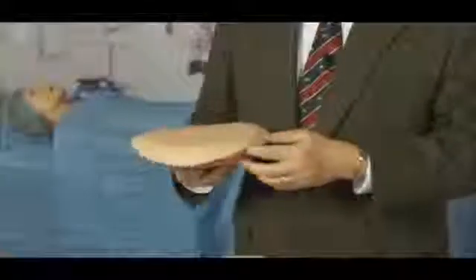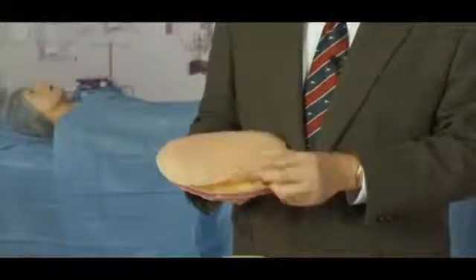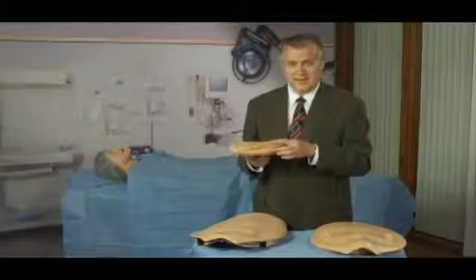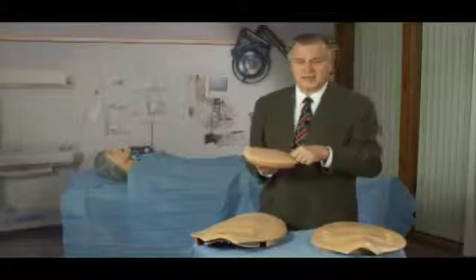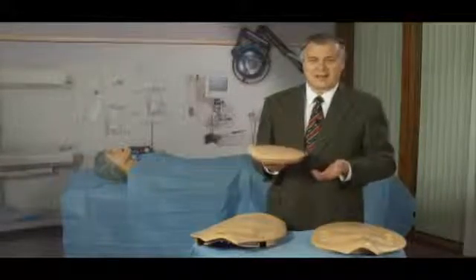It's got simulated skin, which is thick enough for you to reclose and reuse, just like the rest of this part. The subcutaneous tissue has blood embedded in it. So this fake blood looks very real. When the learners make their incision and they see the blood at the end of their scalpel blade, that helps them suspend their disbelief. It helps them act like they would act in a real operating room.